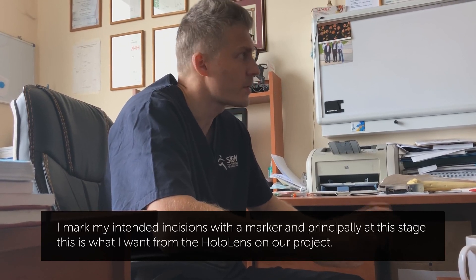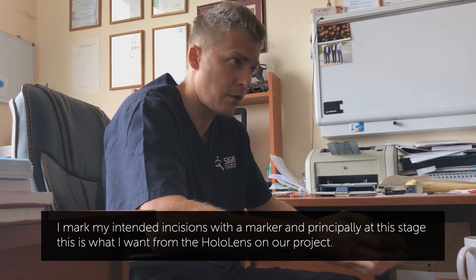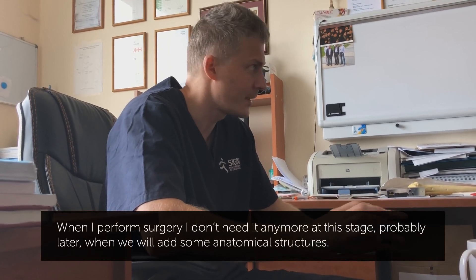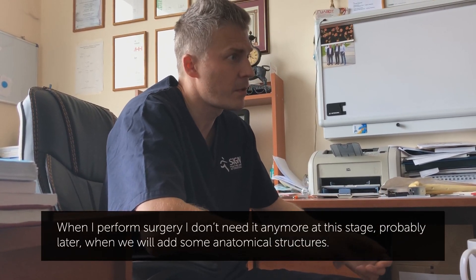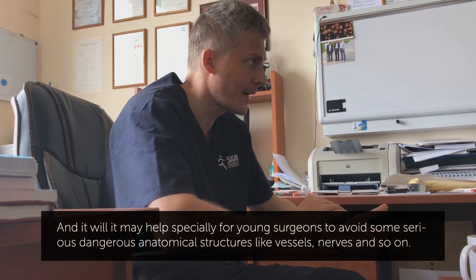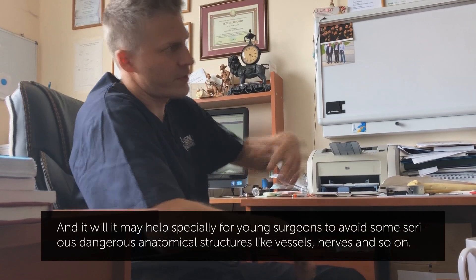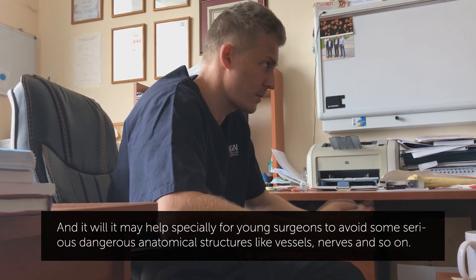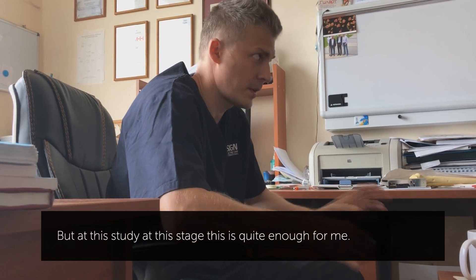At this stage, this is what I want from HoloLens and from our project. When I perform surgery, I don't need it anymore at that stage. Probably later, when we add some anatomical structures, it may help — especially for young surgeons — to avoid serious, dangerous anatomical structures like vessels and nerves. But at this stage, this is quite enough for me.